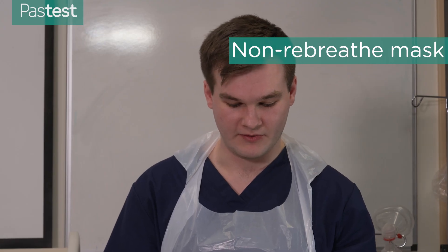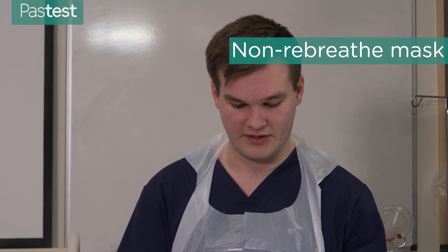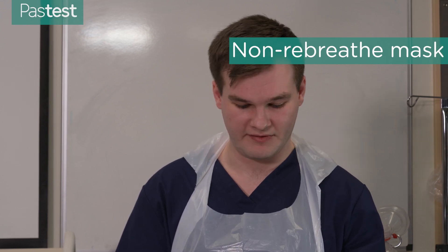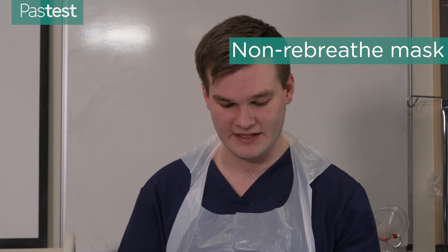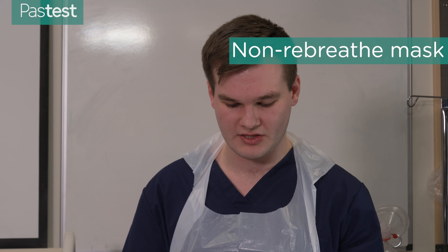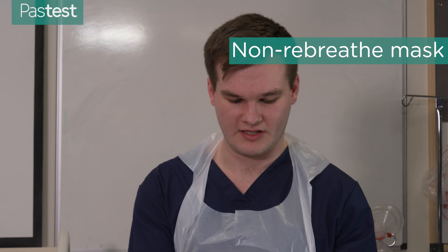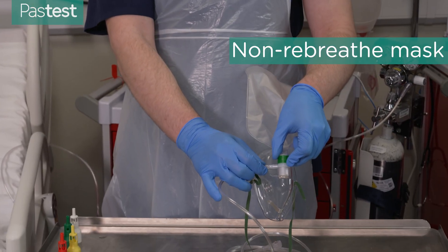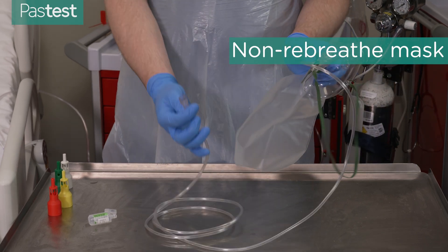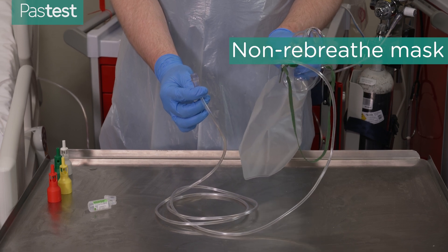These masks are used for very acutely unwell patients — often even before you've found out their oxygen saturations. If someone is crashing, for example, or peri-arrest, you can put one of these on, set it to 15 litres flow rate, and it will deliver around 60 to 80 percent oxygen concentration. You connect the oxygen to the side of the mask and attach it to your wall or oxygen cylinder.